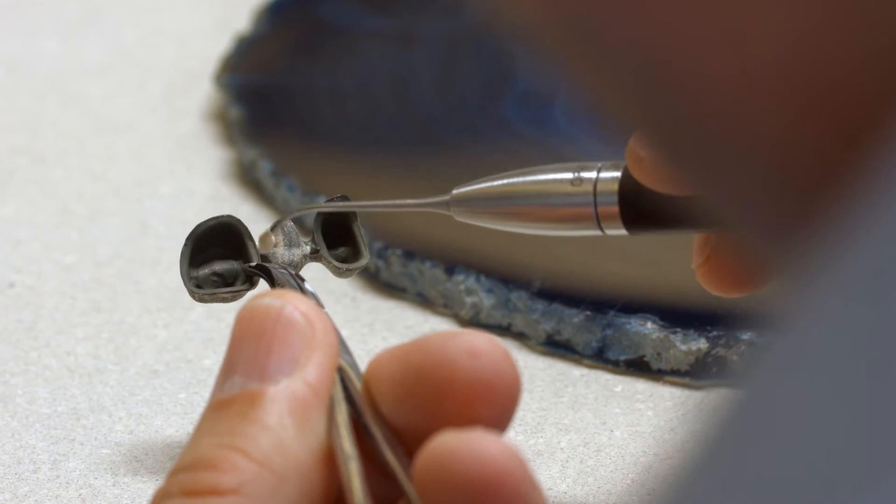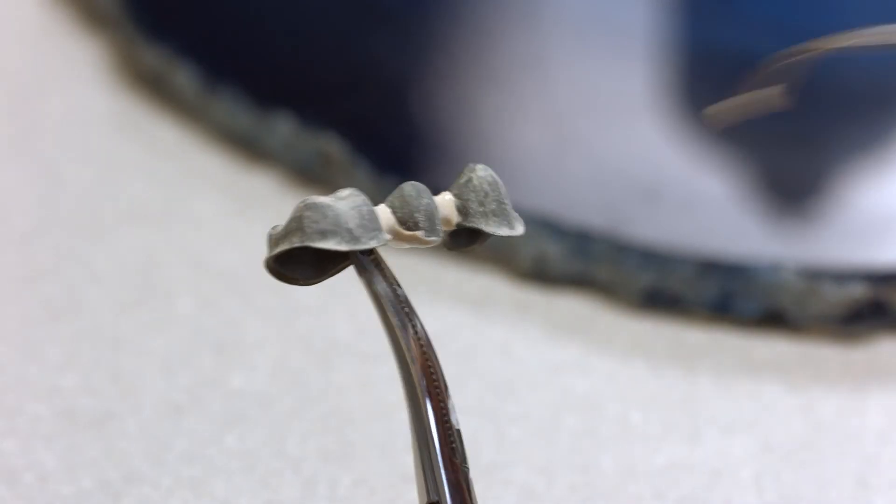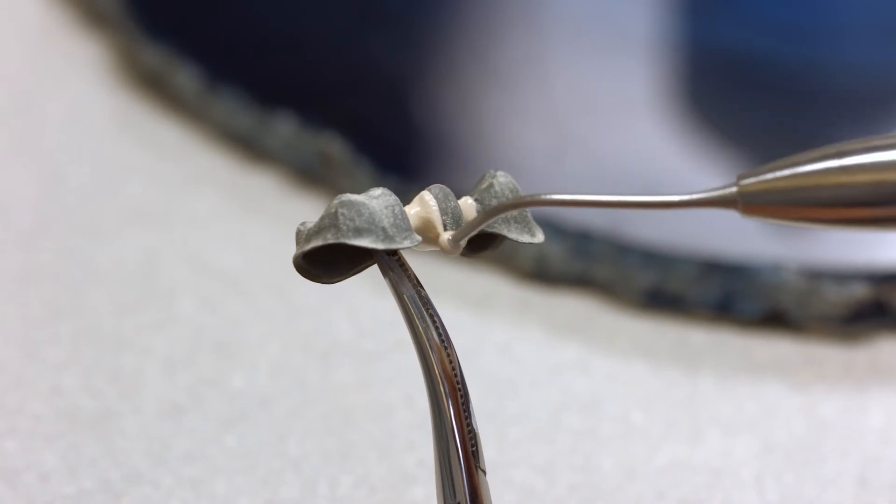Apply an even, full coverage second opaquer layer. Use a brush or ball-shaped ceramic instrument for this purpose.